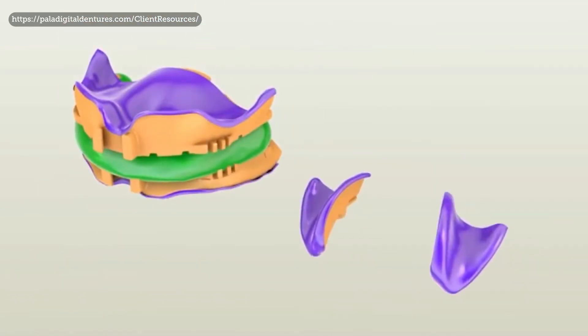There are some real drawbacks to the two-visit approach, the most obvious being the total and complete reliance on your initial impression and the measurements you take to create the prosthesis. With only two visits you won't be able to have a try-in, and the most common reason for remakes or resets is patients disagreeing with the aesthetics — whether that be tooth color, tooth shape, or some other aesthetic metric. Try-ins are very useful when fitting a denture for the first time, but again, it's possible.